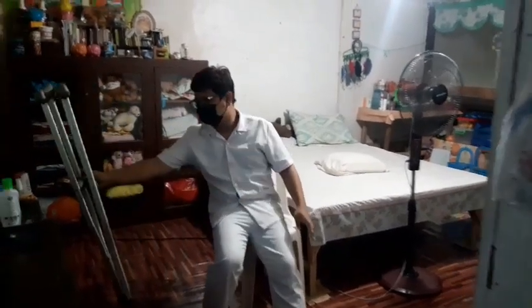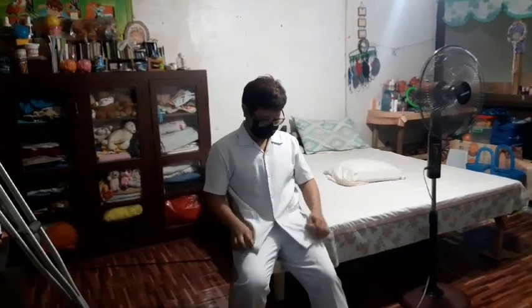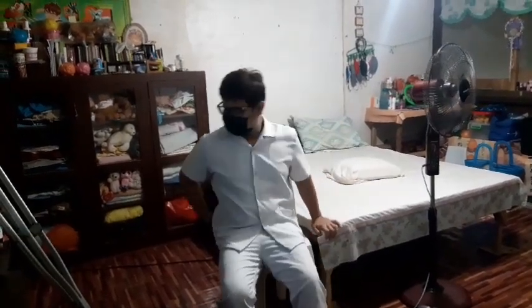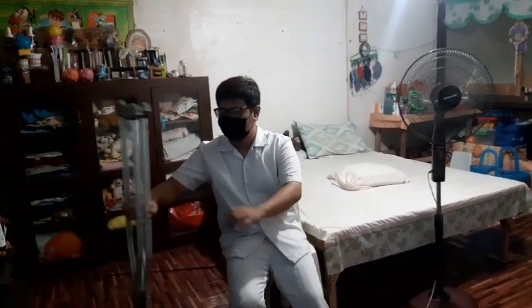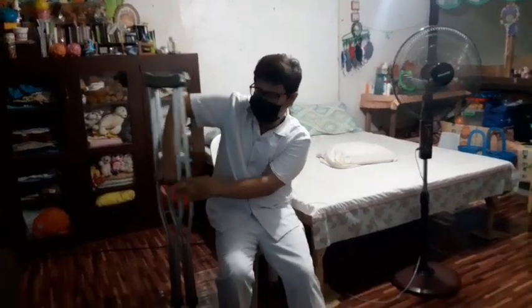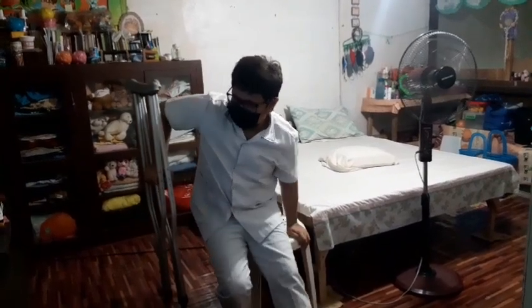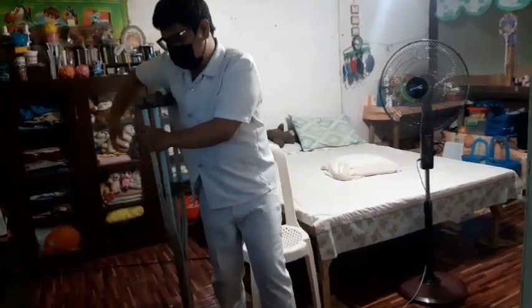Then in standing up or getting out of the chair, move forward to the edge of the chair and place the unaffected leg slightly under or at the edge of the chair. Grasp the crutches by the handbars with the hand on the affected side, and the arm of the chair with the other hand. Then push down on the crutches and the chair armrest while elevating the body out of the chair. So this is how it is done. Lastly, assume a tripod position before moving or walking. So this is how it is done.